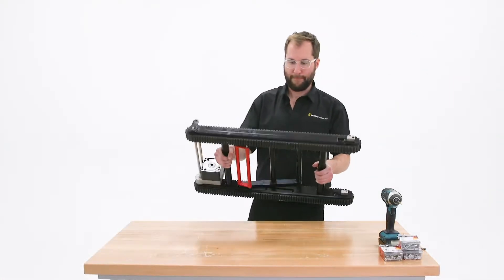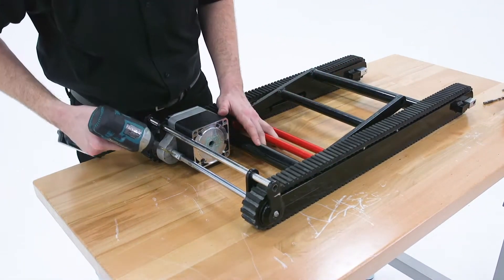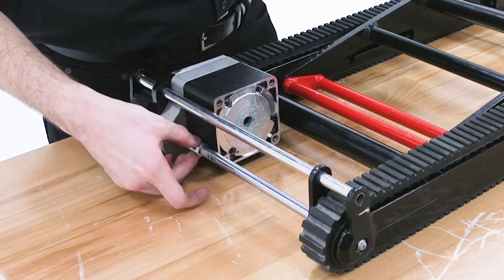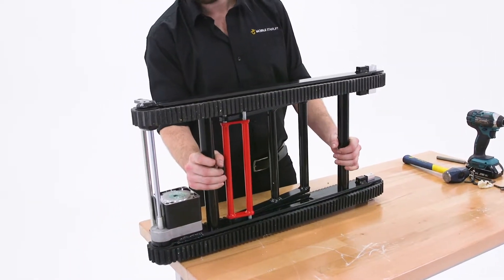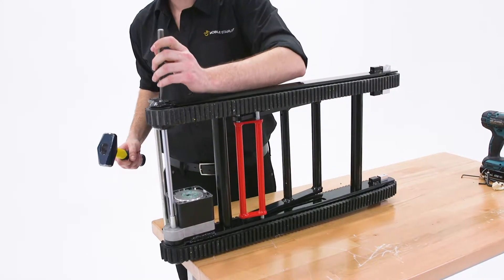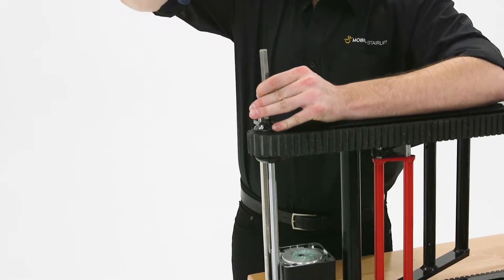Place the track housing on your work surface and use a drill to remove the rivet on the axle connected to the motor. Then rotate the tracks 90 degrees so that they are sitting upright on the table.